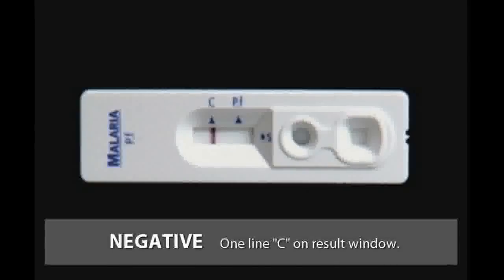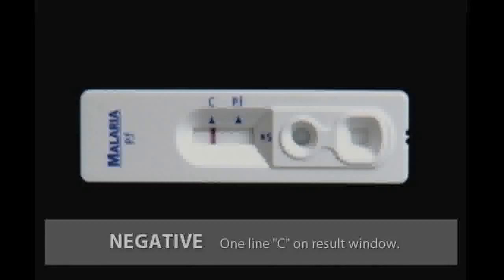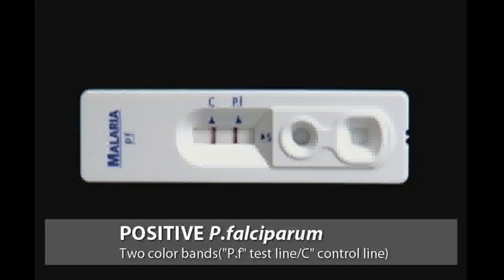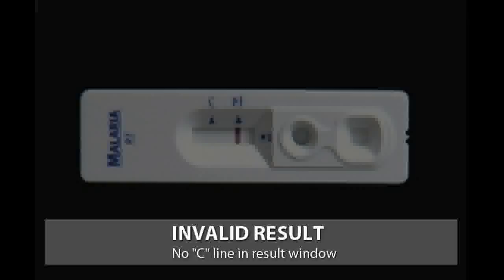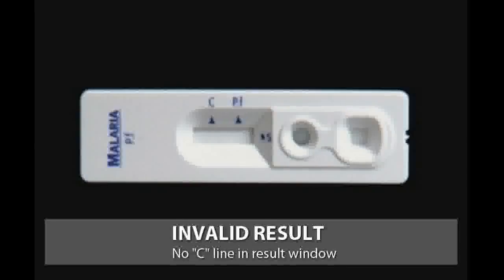Only one line C on result window means negative. 2 color bands on PF and C line mean Plasmodium falciparum positive. Test is positive even if the test line is faint. If no line appears near the letter C, conduct test again with a new test device and new disposable specimen loop.